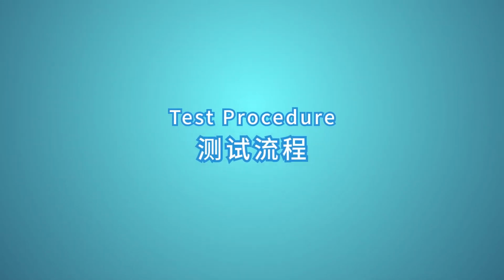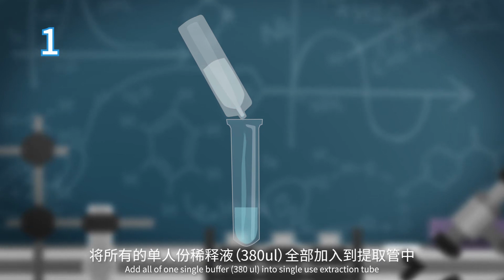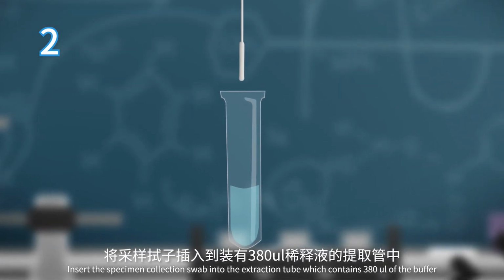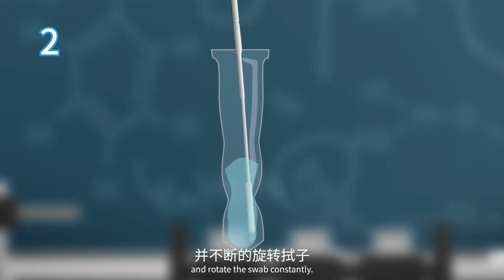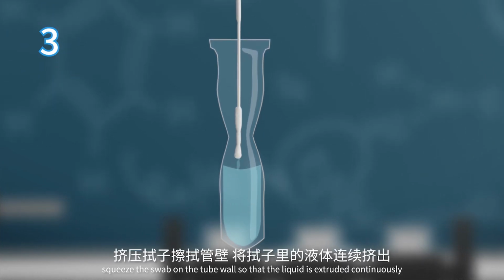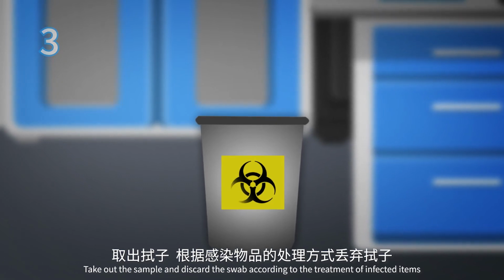Test procedure. Step 1. Add all of one single buffer, 380 microliters, into single-use extraction tube. Step 2. Insert the specimen collection swab into the extraction tube, which contains 380 microliters of the buffer, and rotate the swab constantly. Repeat 10 times. Step 3. Squeeze the swab on the tube wall so that the liquid is extruded continuously. Take out the sample and discard the swab according to the treatment of infected items.